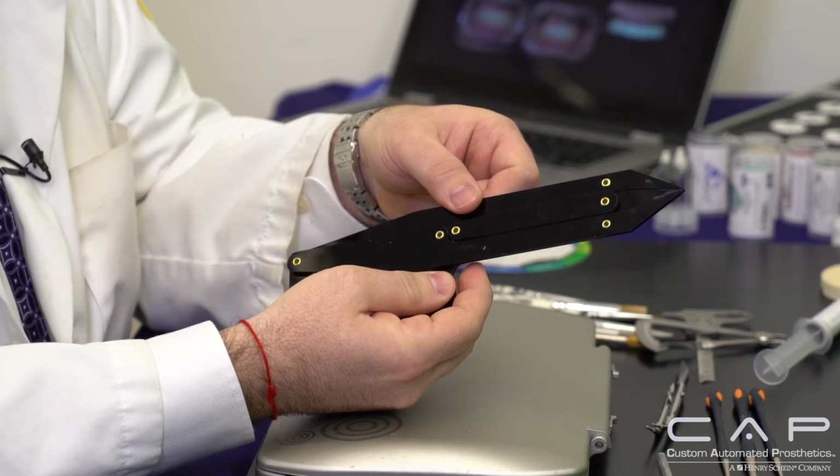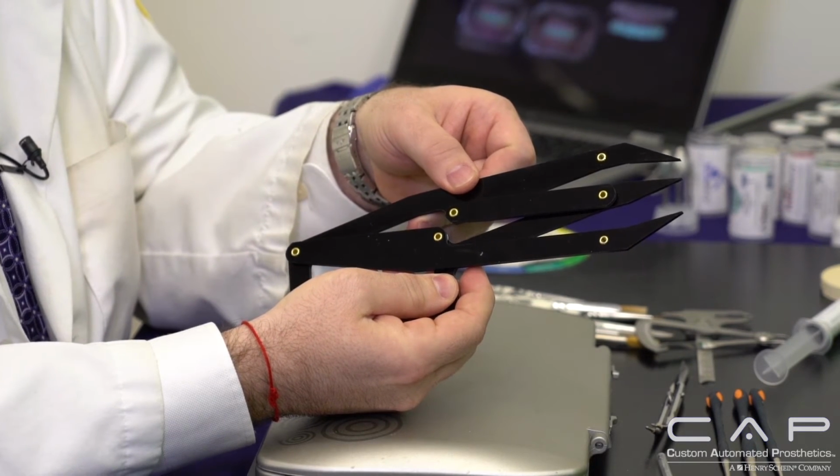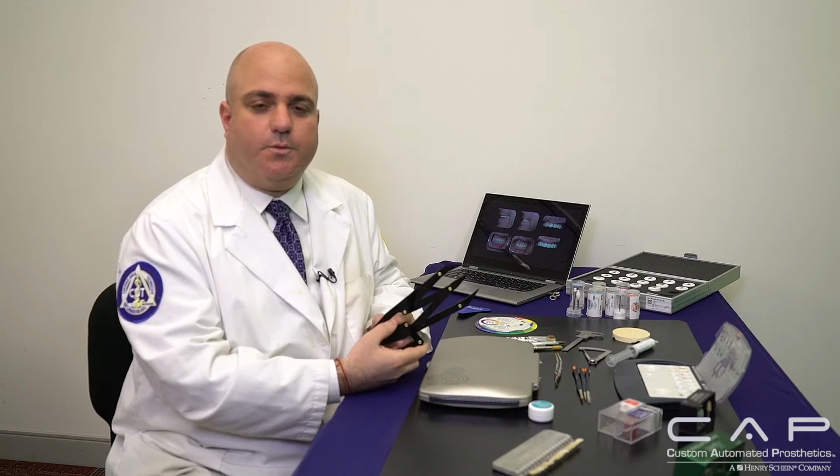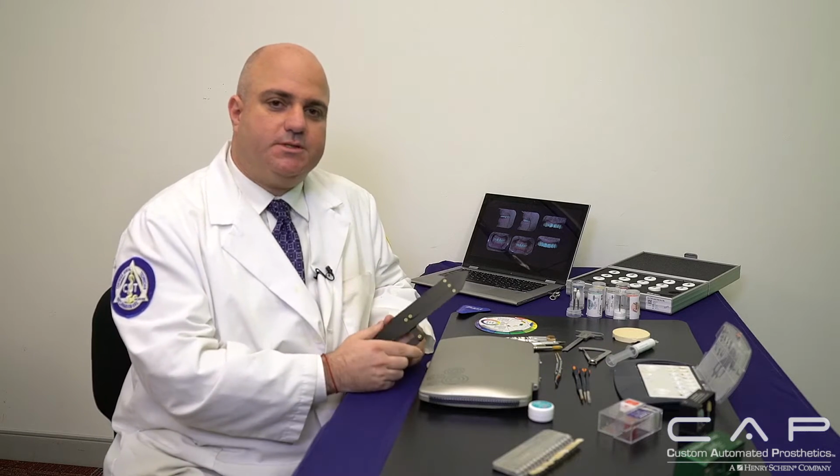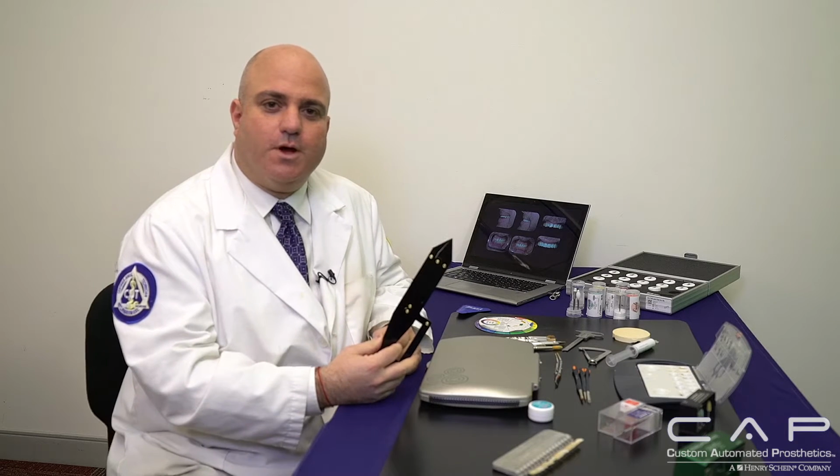So as I'm doing diagnostic wax ups or even diagnostic mock-ups in the virtual world, I always want to abide by the golden rule of proportion because as we know, that does give the best results and the most ideal and harmonic, pleasing results. But keep in mind that as I say these things with measurements, by no means is it handcuffing you into one way or another. It is just a parameter.